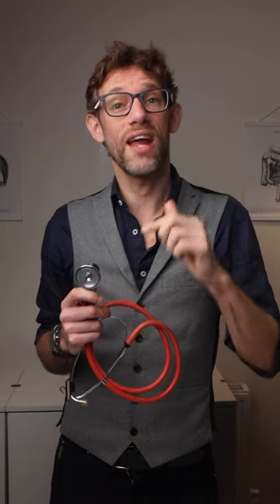When a sound wave enters the stethoscope, it causes vibration of the diaphragm, which then produces a sound that can be heard by the listener. Although high-frequency sounds are typically narrow, they can be detected by the diaphragm because they have a higher pitch than low-frequency sounds.